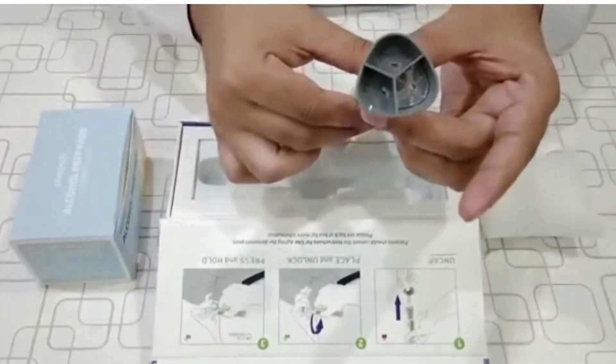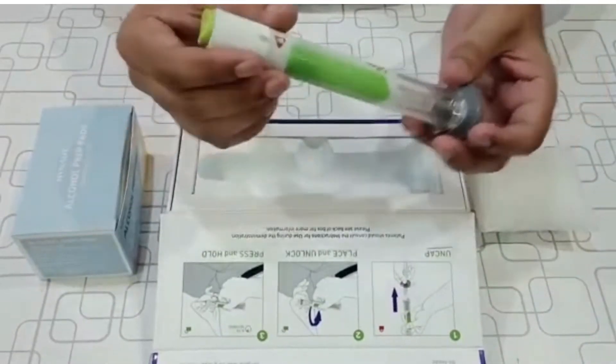It is injected into the abdomen, thigh, and back of upper arm subcutaneously.